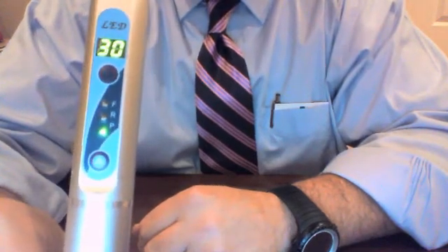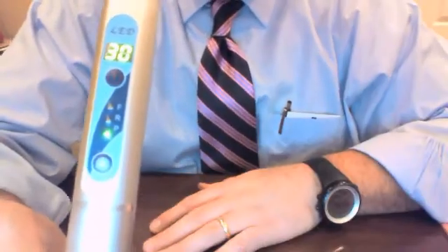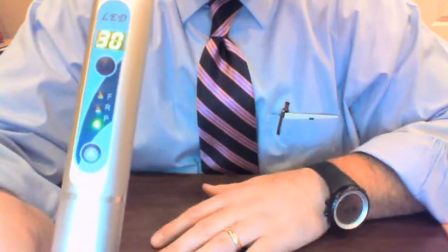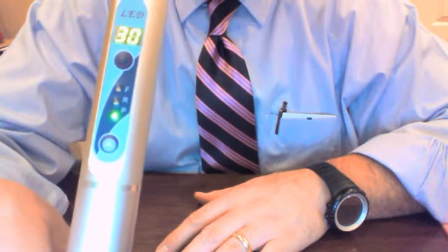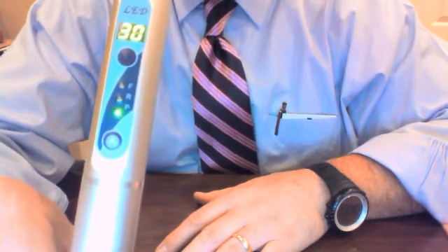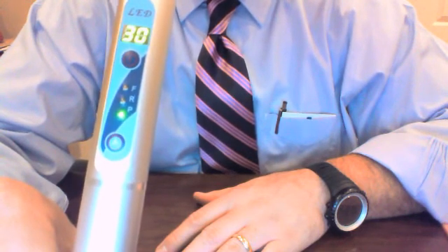The ramp mode is a ramping feature which starts out at zero milliwatts and works its way up to maximum power. It has two different intervals — 10 seconds and 20 seconds. When you're using ramp mode, you don't need a short time period, so it only offers 10 and 20-second intervals. The pulsated mode is available in 10, 20, and 30-second intervals. Both the ramp mode and the pulsated mode also beep every five seconds.